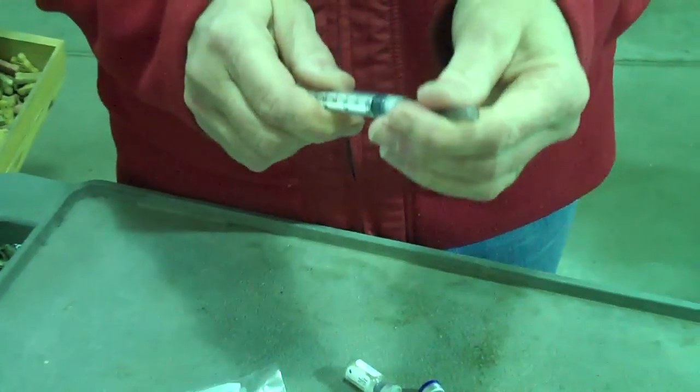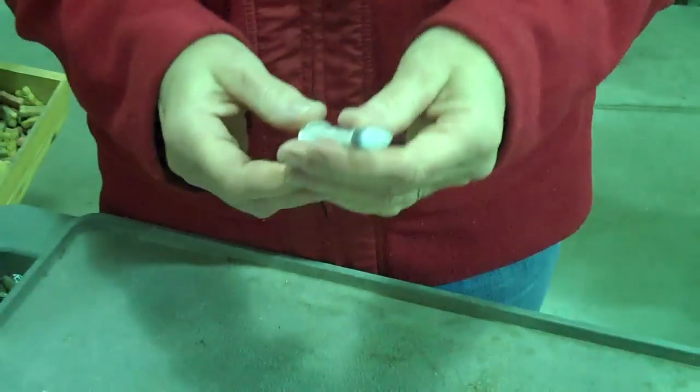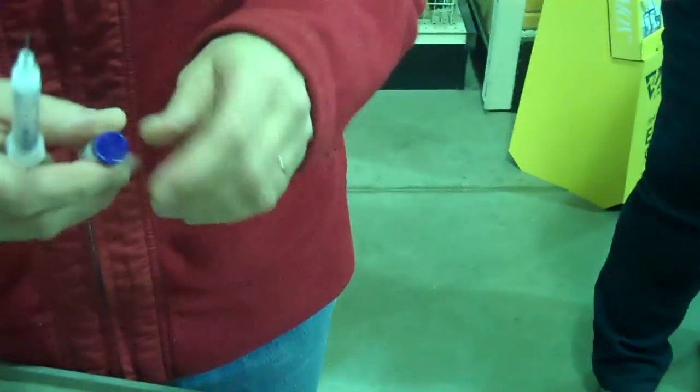The biggest thing is getting everything set up correctly. Included is all the stuff you need: the needle and the syringe, the dry vaccine and the sterile solution.